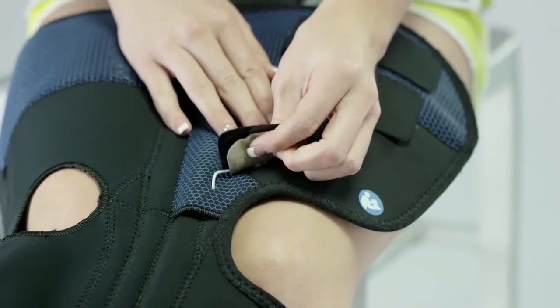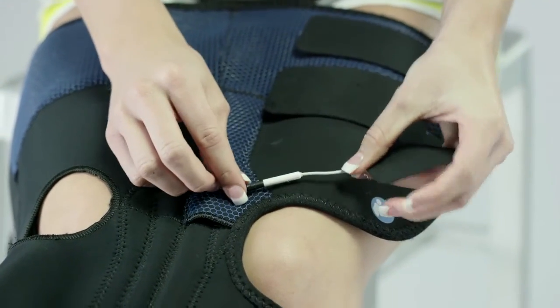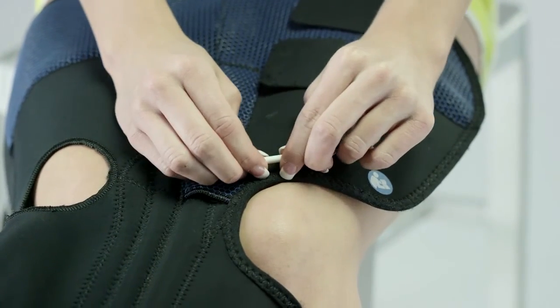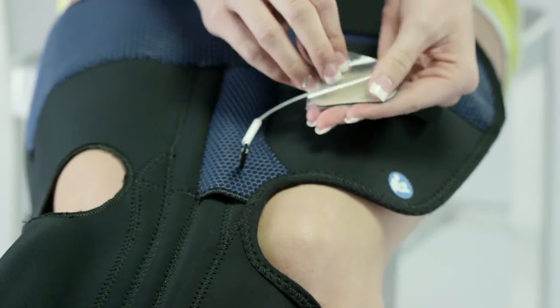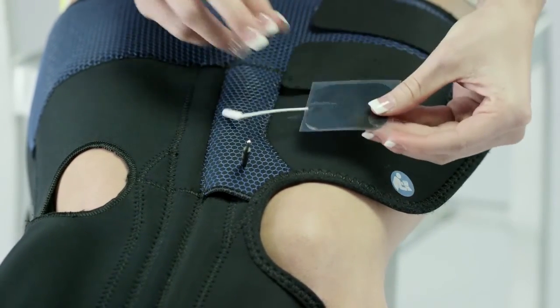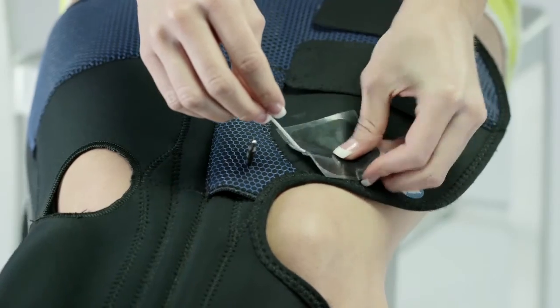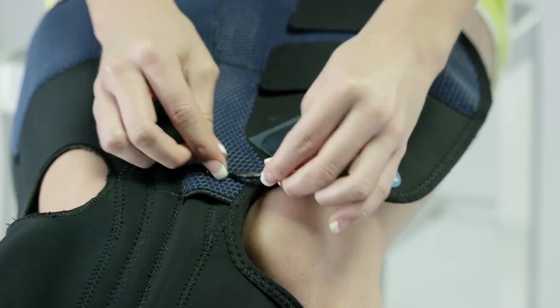To replace the electrodes, peel the electrodes from the conductive garment and gently pull the white wire out from the hole. Detach the white electrode wire and reattach to the new electrode wire. Remove the hydrogel liner cover from the tan side of the electrode exposing the sticky hydrogel. Stick the electrode back into the appropriate position. Push any exposed wire back into the wire hole in the garment.